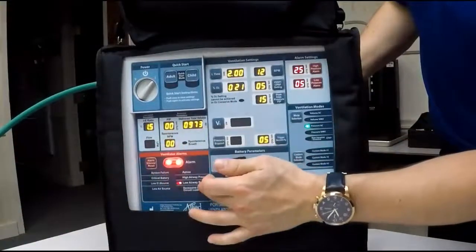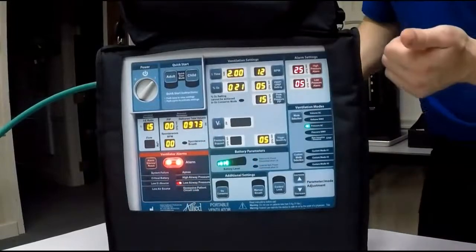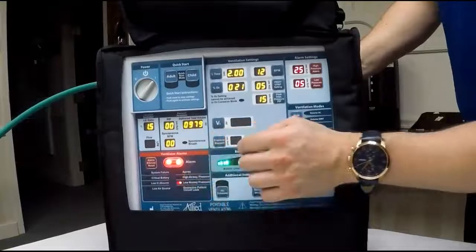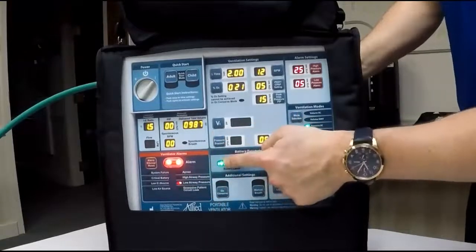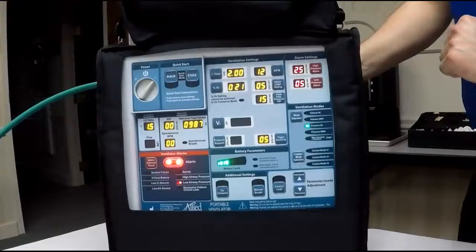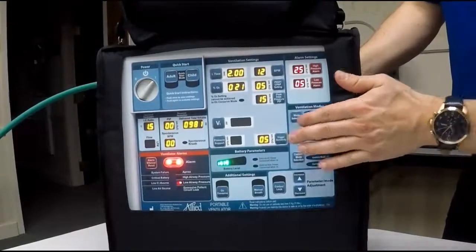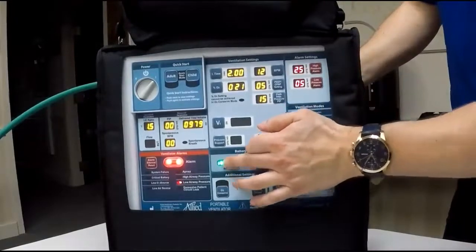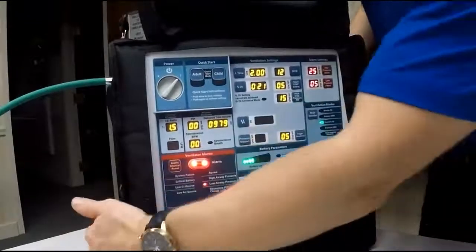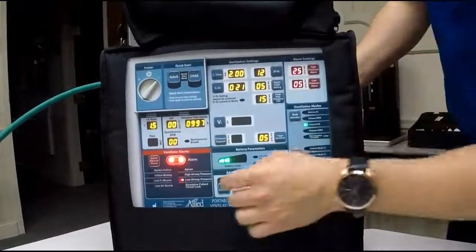Now you have your alarms. System failure, do not use the unit if that does turn on. You want to send it back to the manufacturer for check. Critical battery, what that means is only these last 2 lights are illuminated and they will turn red, and that means you only have 20 minutes left in the battery. This internal battery is 7.5 hours. If you go down to 20 minutes or less, you then either want to turn the unit off, or if you're going to continue ventilating, you hook up the power cord down here to the bottom side of the unit.